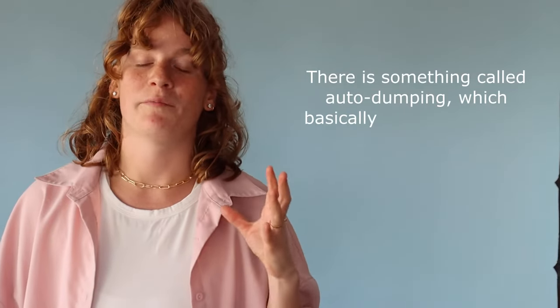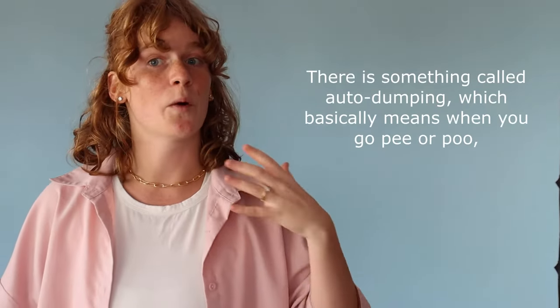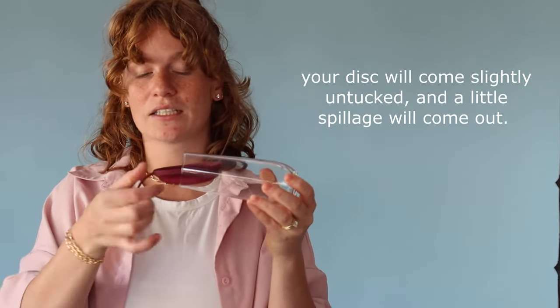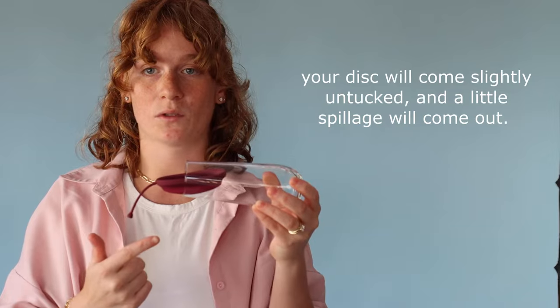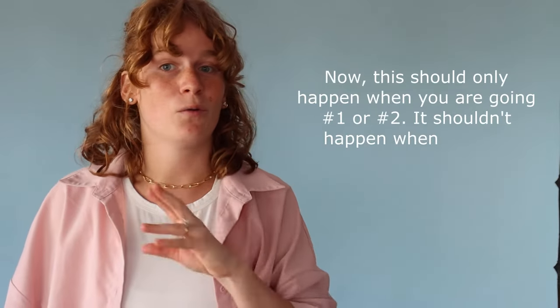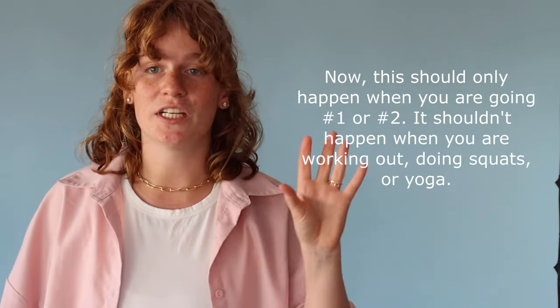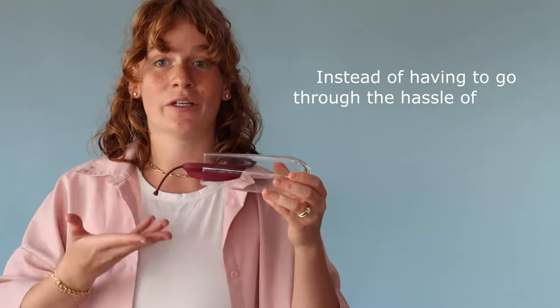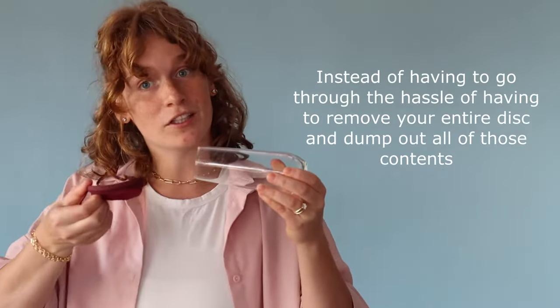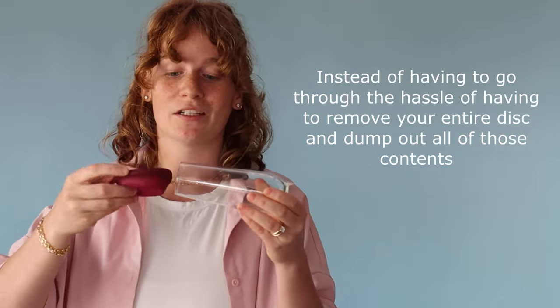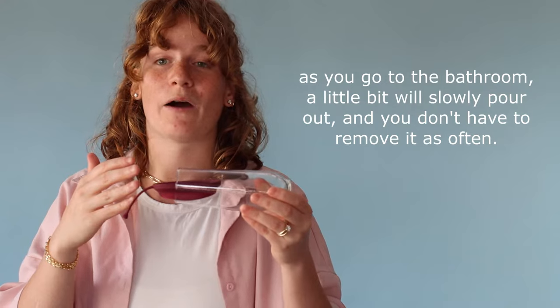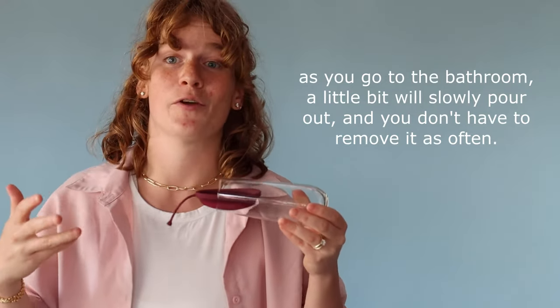There is something called auto dumping which basically means when you go pee or poo your disc will come slightly untucked and a little spillage will come out. Now this should only happen when you're going number one or number two. It shouldn't happen when you're working out or doing squats or yoga. So instead of going through the hassle of having to remove your entire disc and dump out all those contents, as you go to the bathroom a little bit will slowly pour out and you don't have to remove it as often.